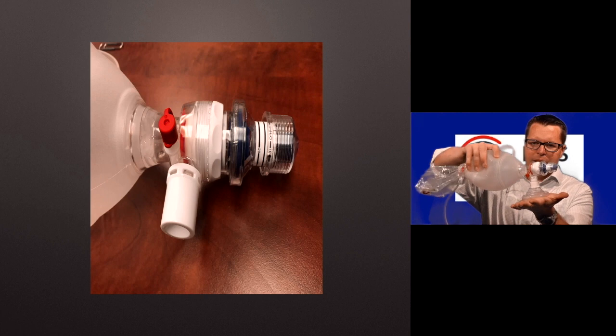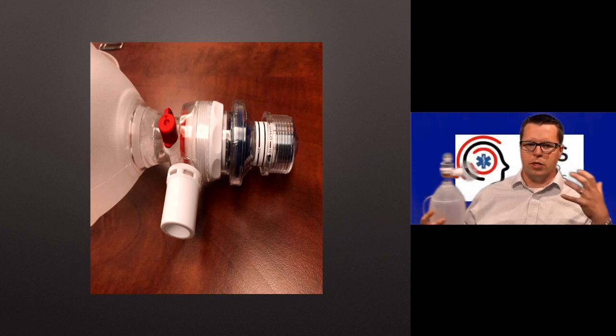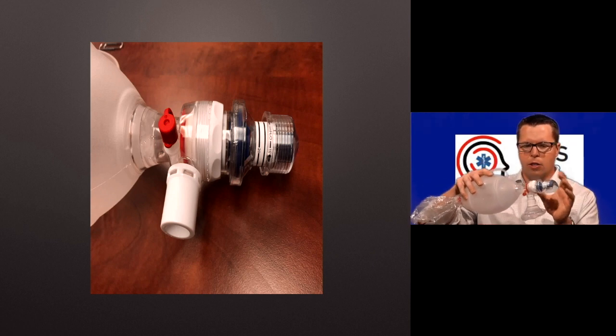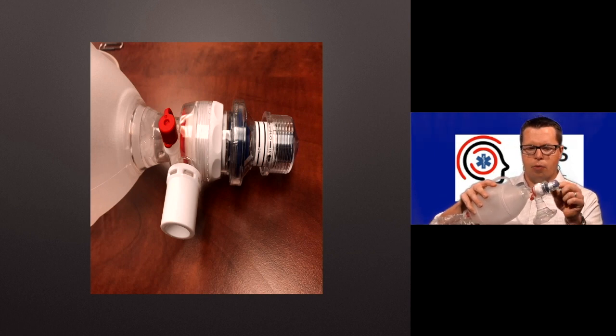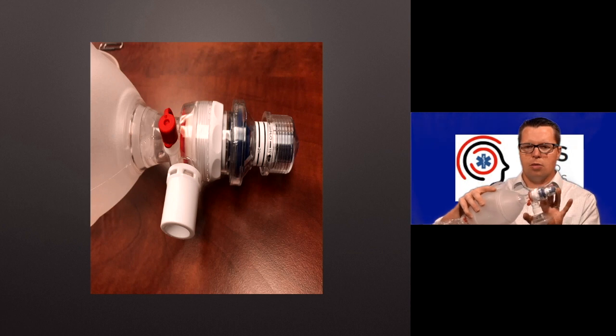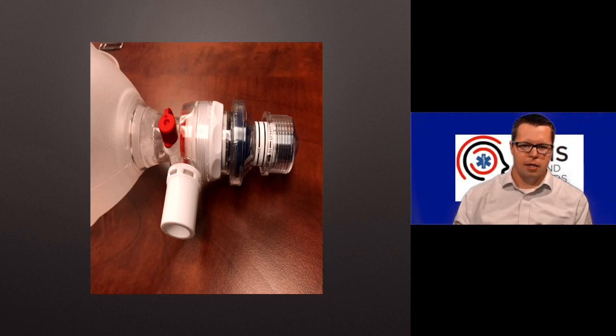If I'm using this and there's any leak at all or any change in the size of the patient's lungs or more segments open up or something like that, then the PEEP that I set here actually goes away because volume changes or the amount of air changes and the pressure is lost, and there's no way to replace that pressure. It just provides some resistance to PEEP going out, which is not terribly effective. It's better than nothing, but it's not terribly effective.